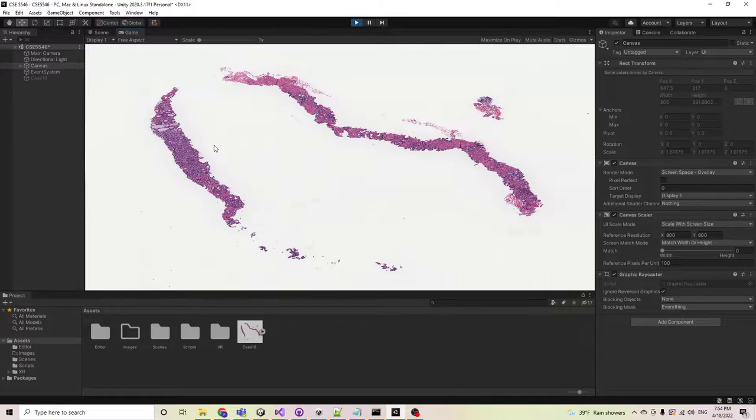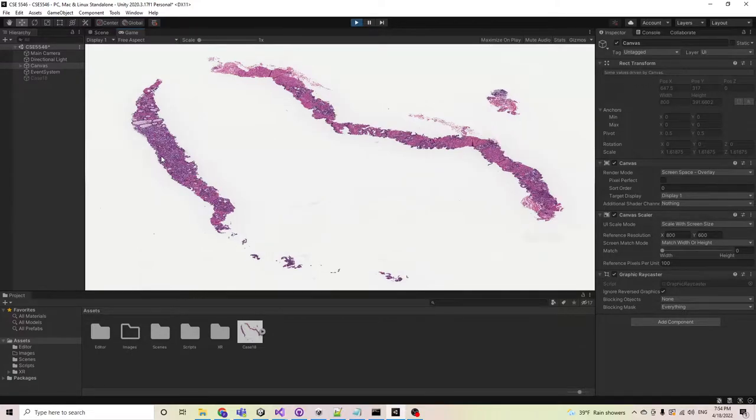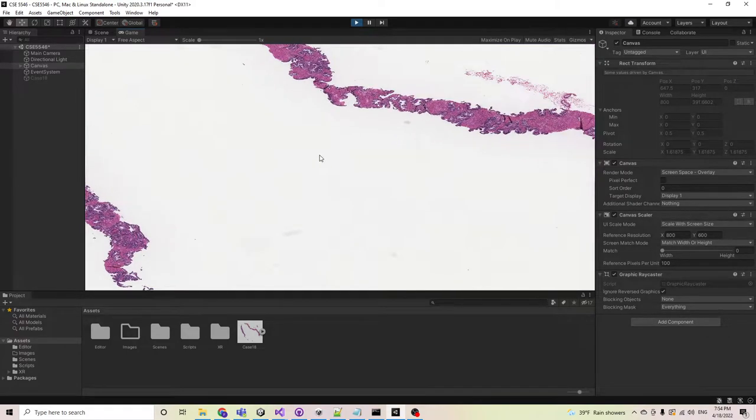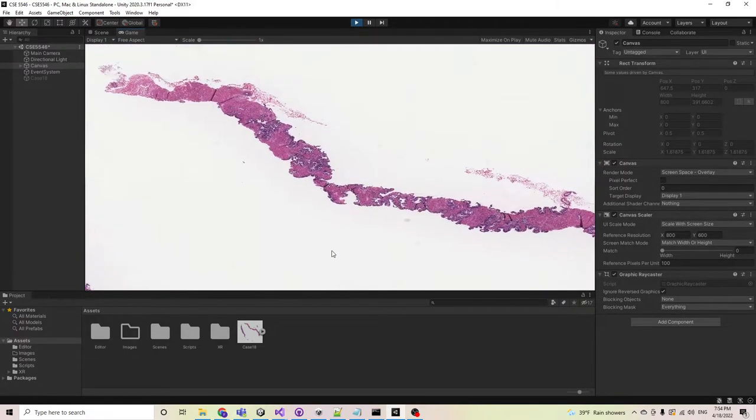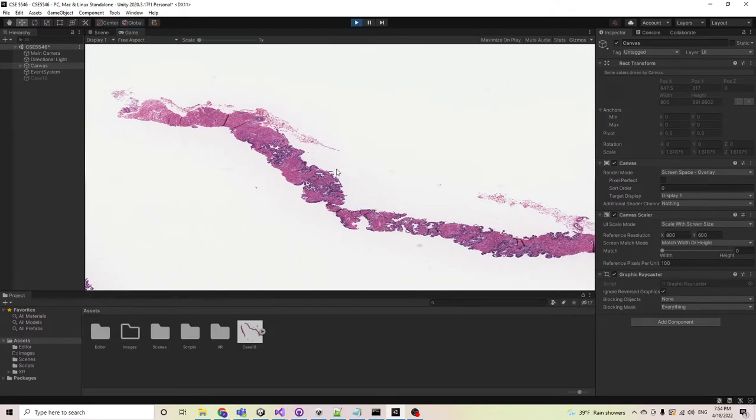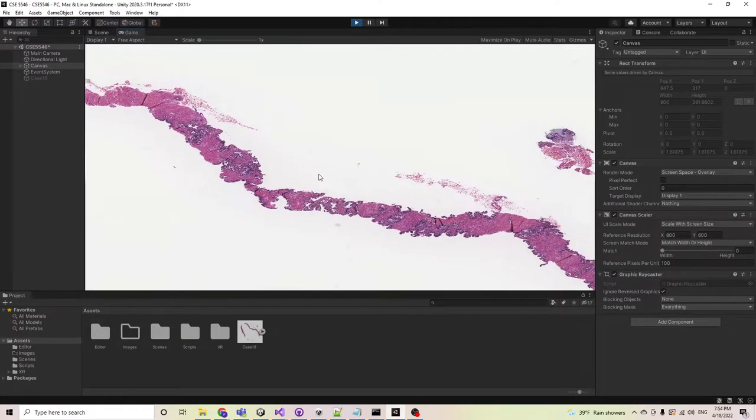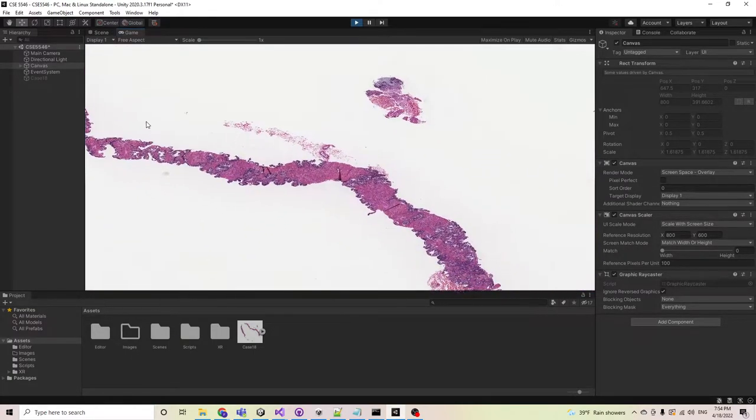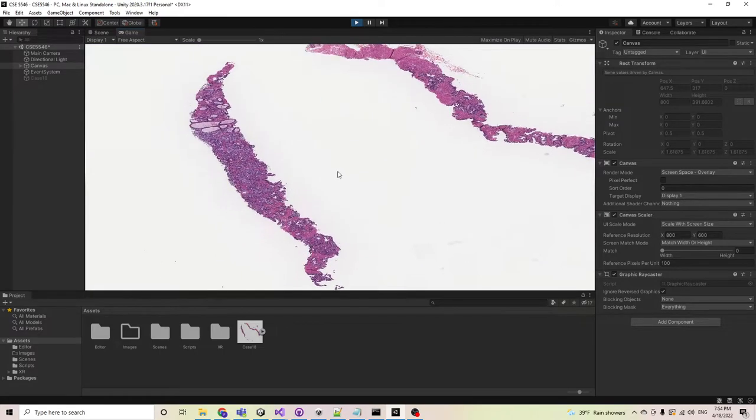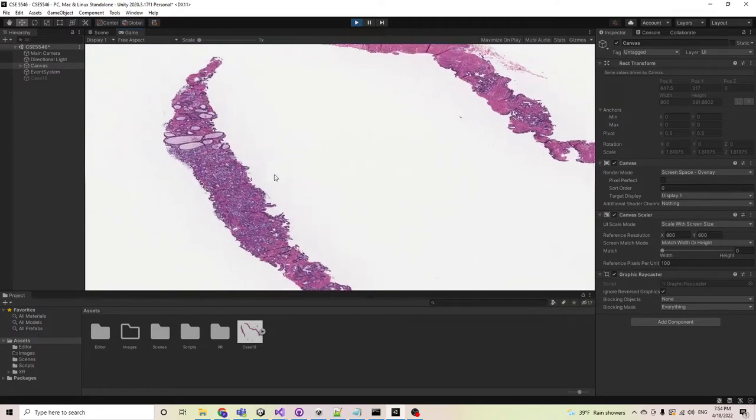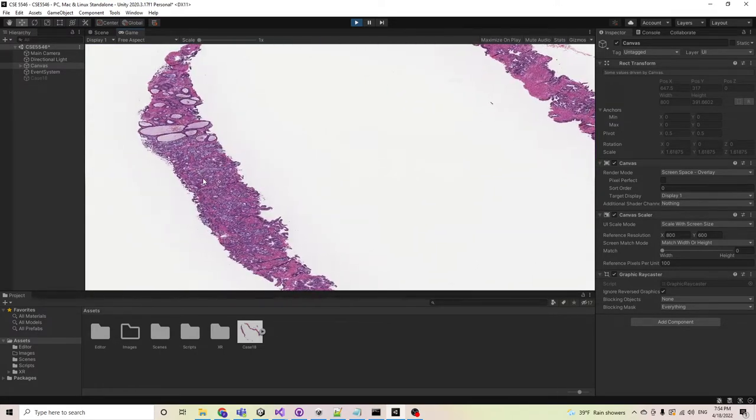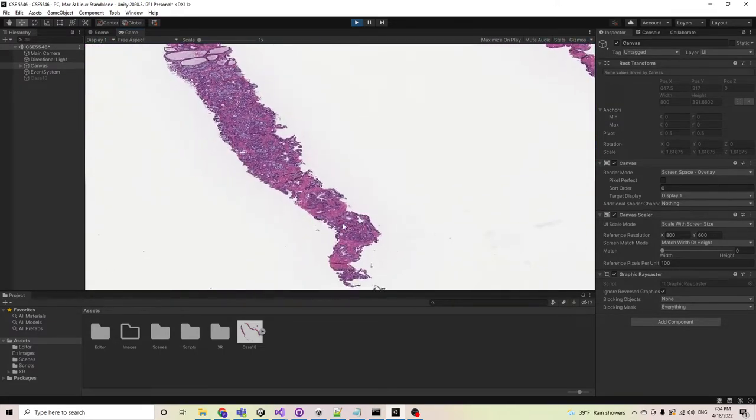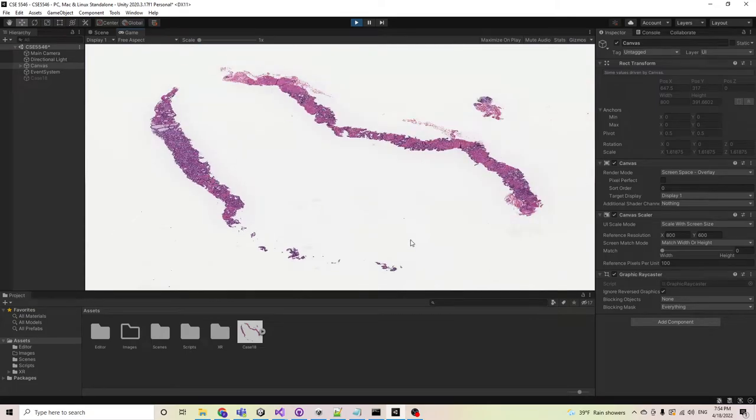There are different options for the doctor to choose. For example, the doctor could use the mouse wheel to zoom into the image and also use the mouse to drag the image to look at the parts they want to analyze.